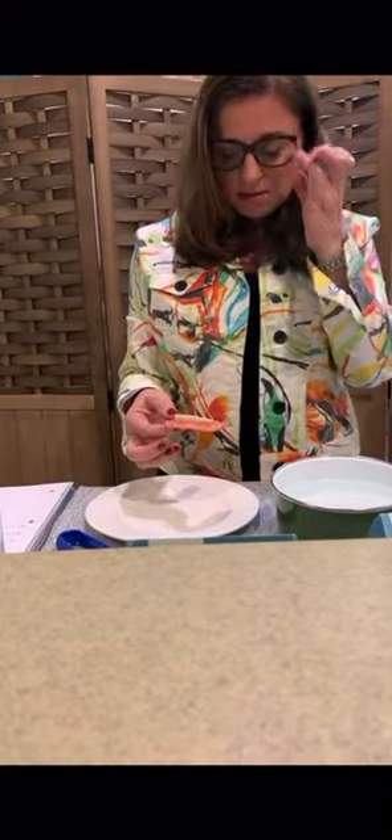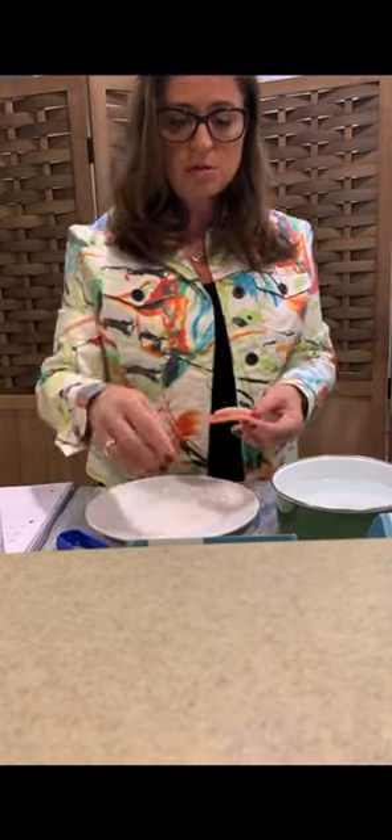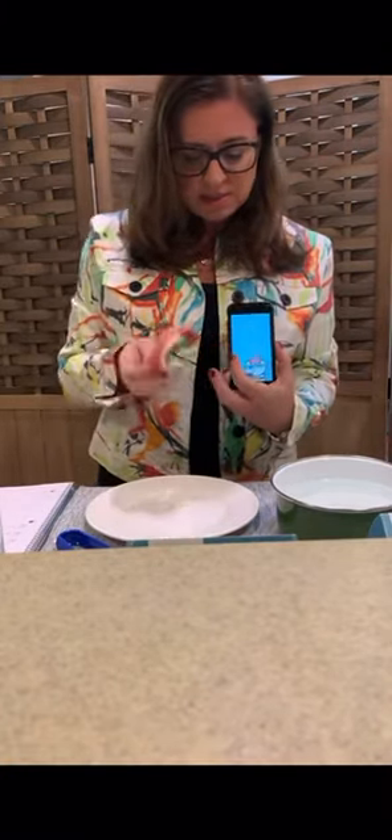Easy Denture comes in two sizes: small/medium and medium/large. That's it, those are the two sizes. This is a medium large. You'll see — this is an iPhone, you can see about how big that is.